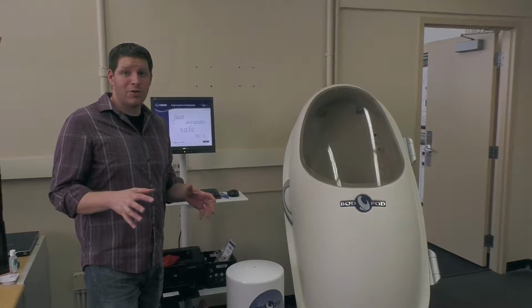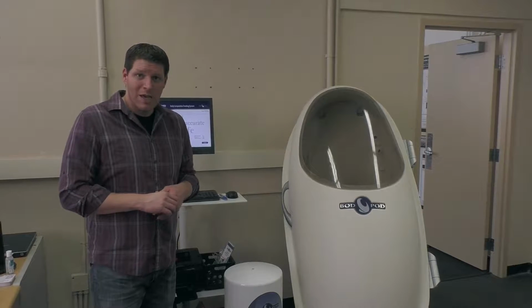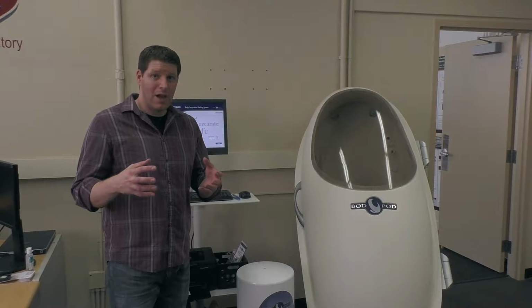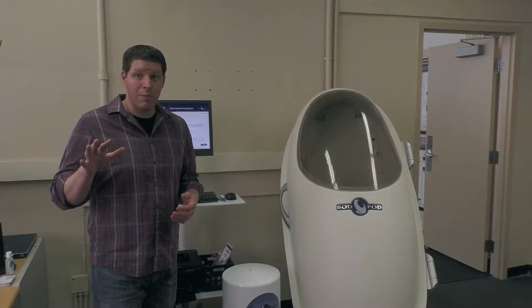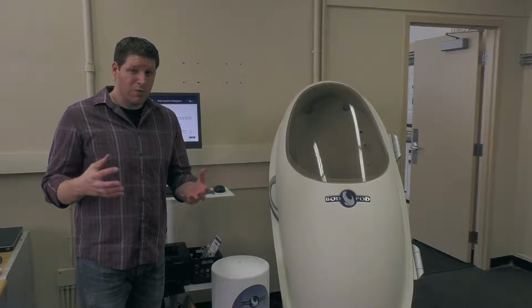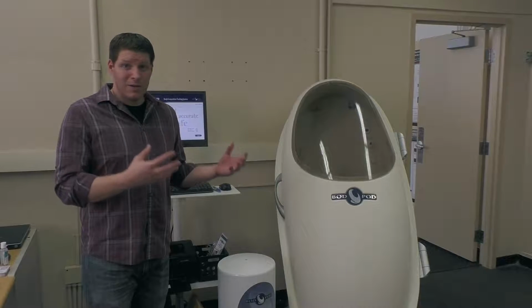As we talked about in lecture, the BOD POD is really the gold standard for body composition assessment. You can make an argument for DEXA, which certainly has its advantages, but as far as the most valid and most practical devices, the BOD POD really is the top of the top. It used to be hydrostatic and underwater weighing, but because the BOD POD is so much more feasible and uses some of the same assumptions and principles, we just do this.